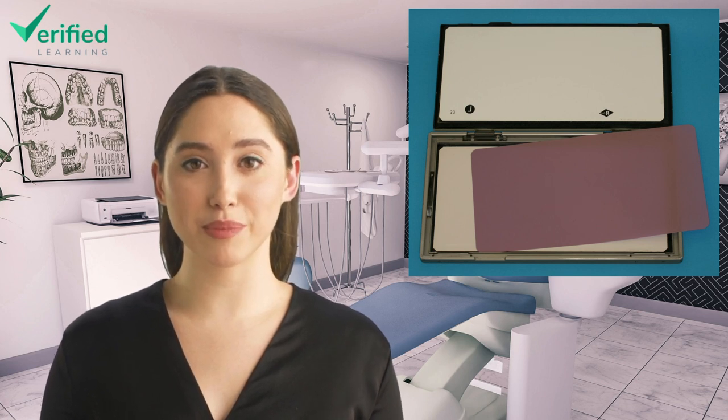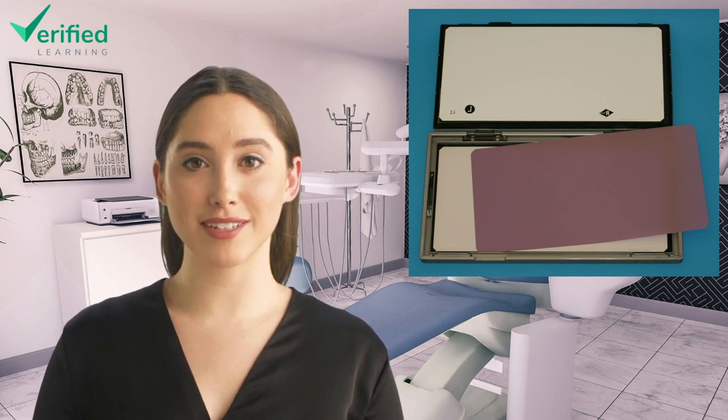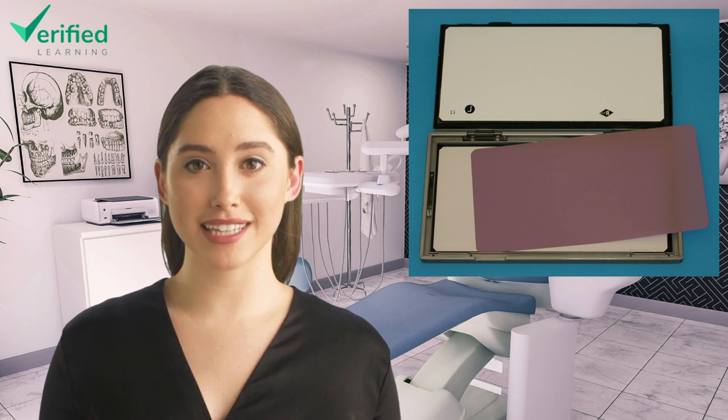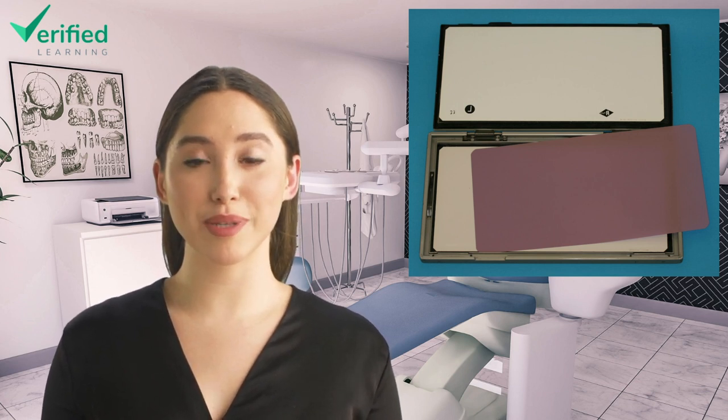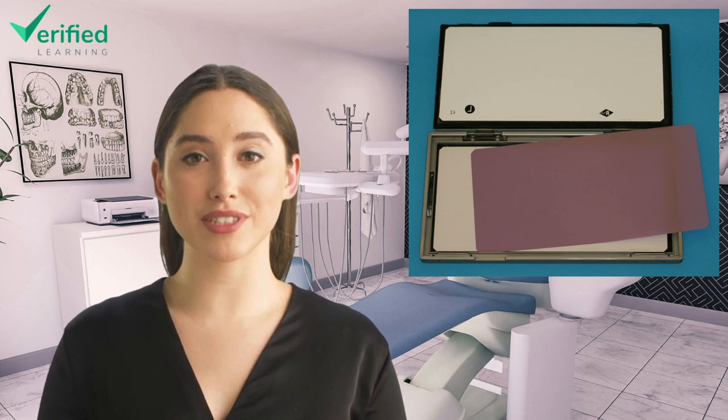There are three main ways that screens are kept in optimal condition. Firstly, screens must be kept clean, so the fluorescent light they produce is not blocked by dirt. However, they must be cleaned very gently, so as not to damage the layer of crystals on their surface. Follow manufacturer's instructions exactly.